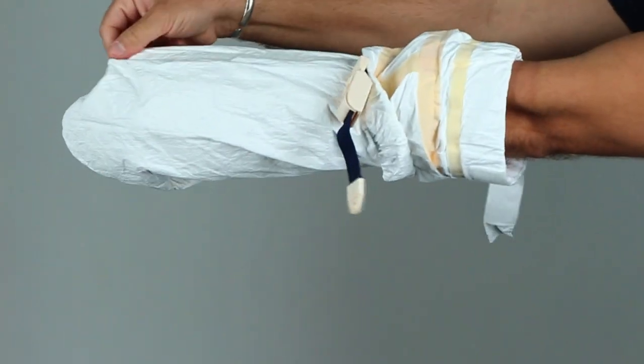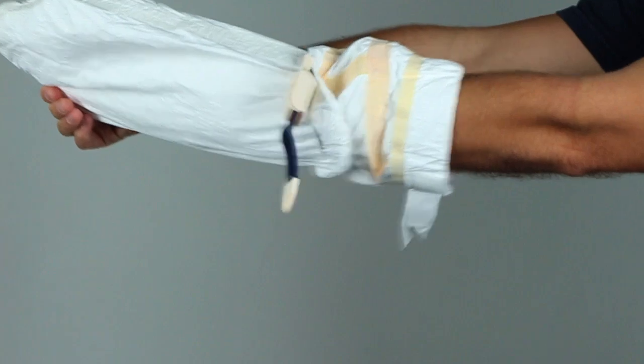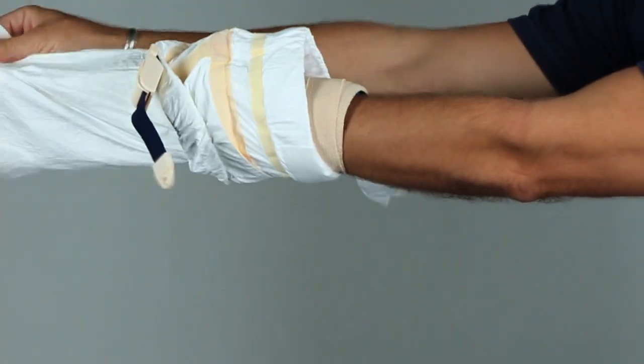Please allow your cast cover ultra to thoroughly air dry before returning it to its original box for storage.